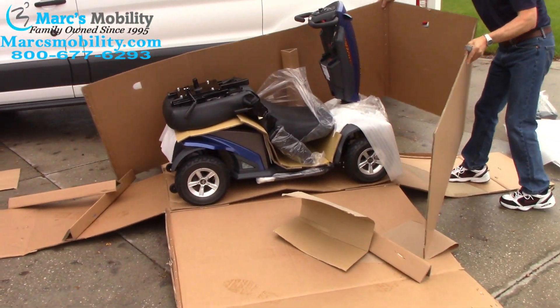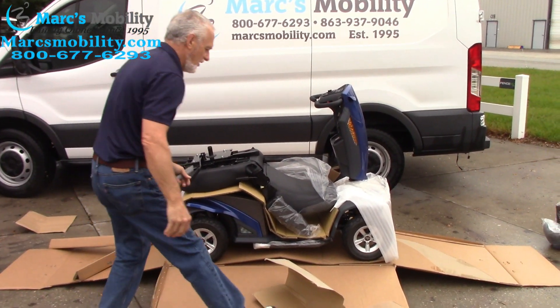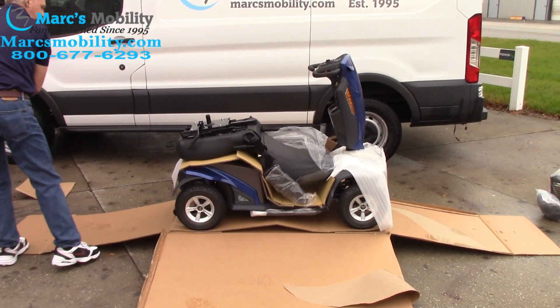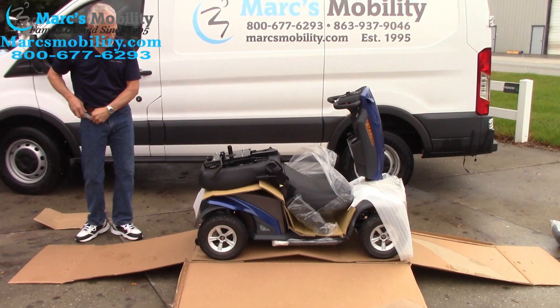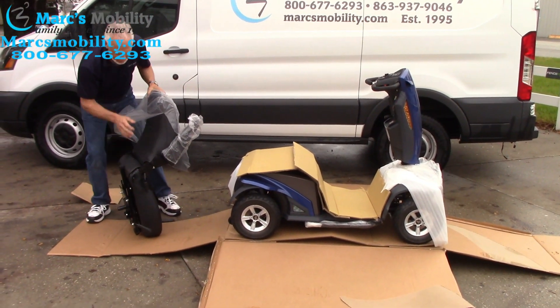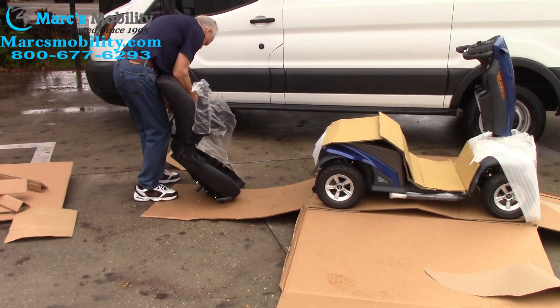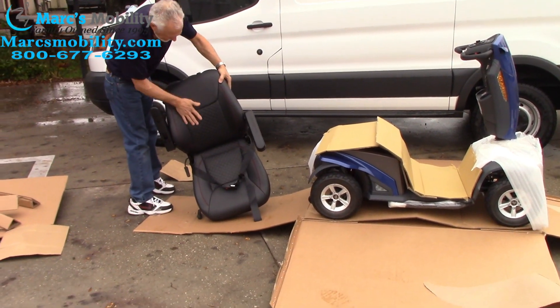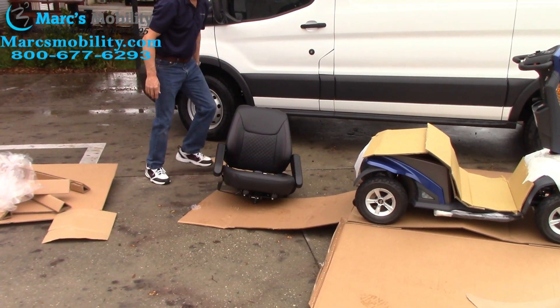We're getting there folks. It's a lot easier now. Take your cardboard and put it on this side — anything you're not going to use, put it on that side. So now we've got the seat, and it's going to be a lot easier to grab. I'm going to grab the seat and put it down, take the plastic off the top and off the arm. It's a beautiful seat. I'm going to crank it up so it's sitting in the up position.